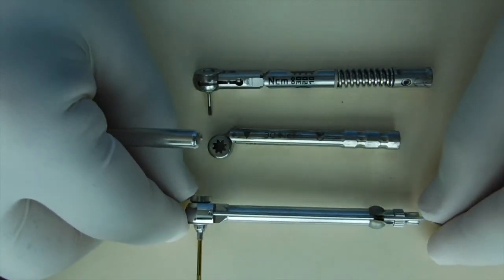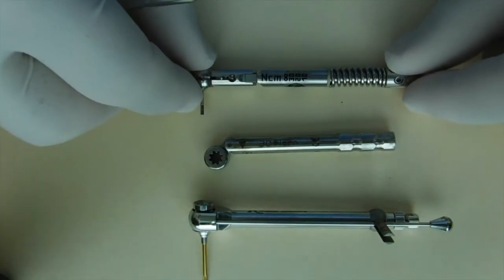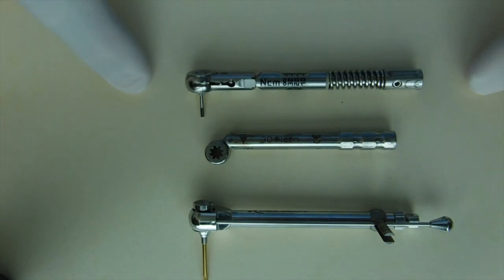And so there you have a demonstration of three of the more common torque wrenches used in dentistry today. Thank you.